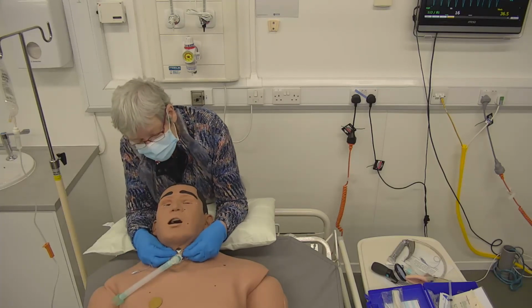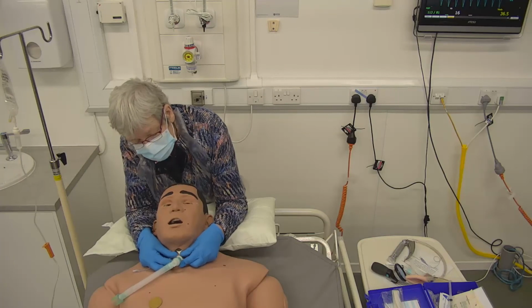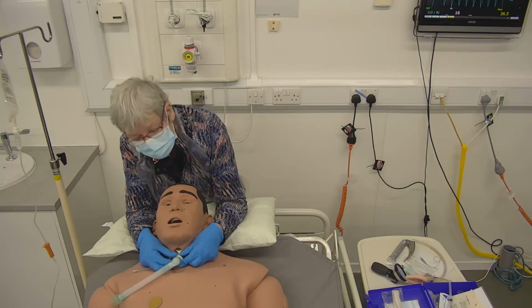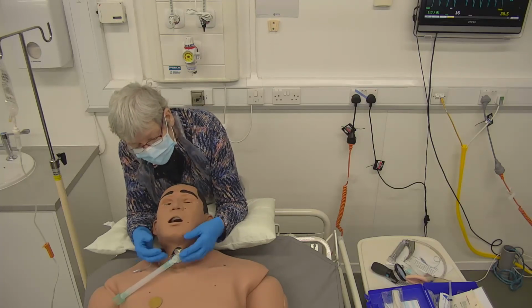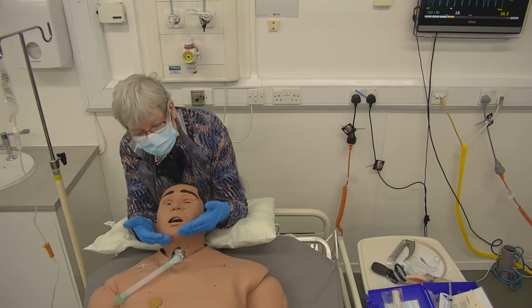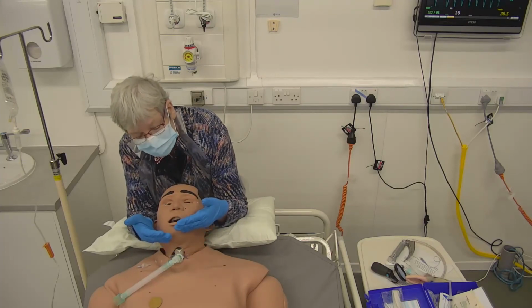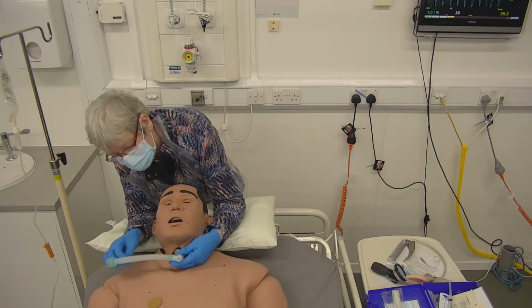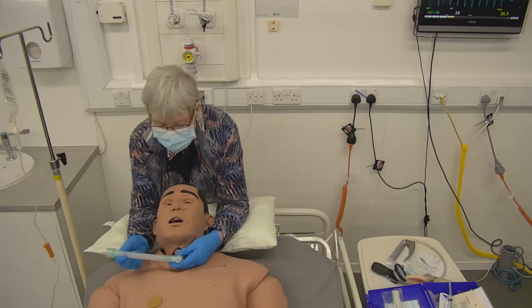The other thing that it also is very difficult to do, because you're tethering, this tends to hold down the whole of the upper airway, including the larynx, which means that swallowing, where you get a rising of the larynx, is rather more difficult, and so swallowing becomes very difficult with these inserted.